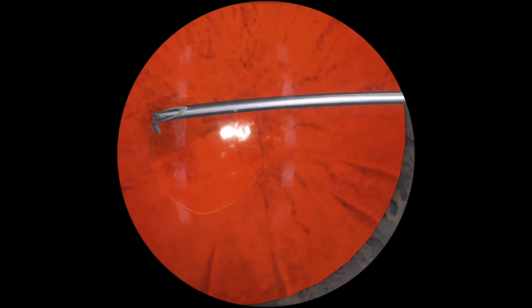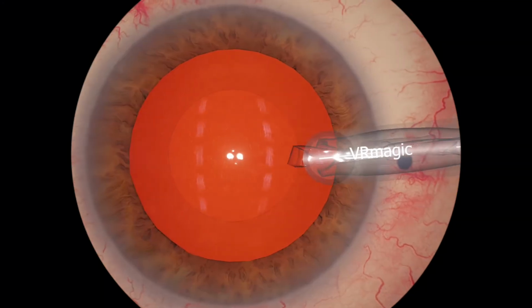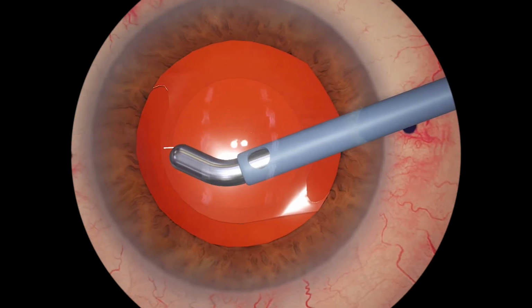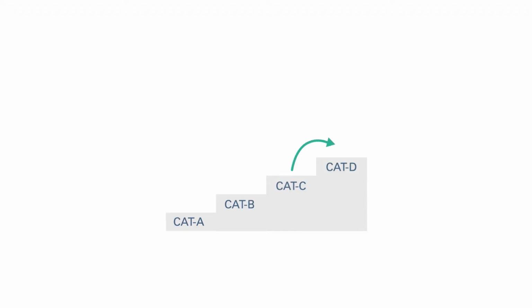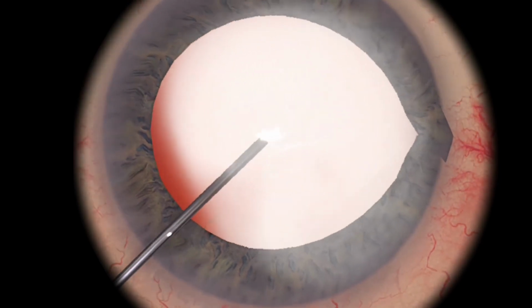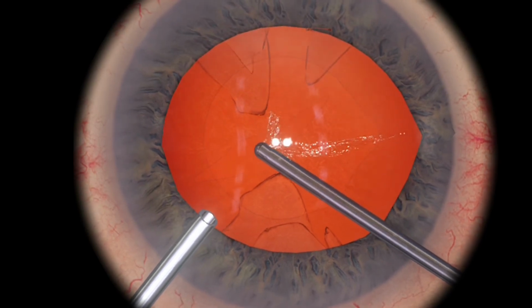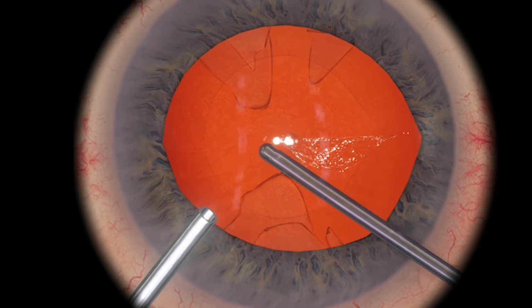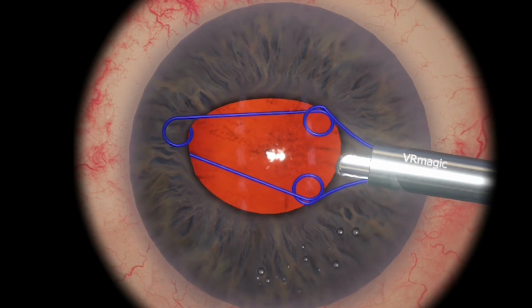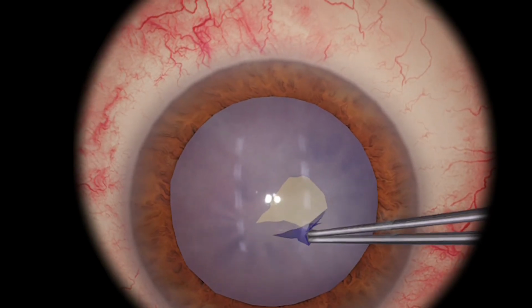Tier C features multi-step surgical tasks. And Tier D challenges trainees with complications, such as anterior vitrectomy, floppy iris syndrome, or handling a milky white cataract.